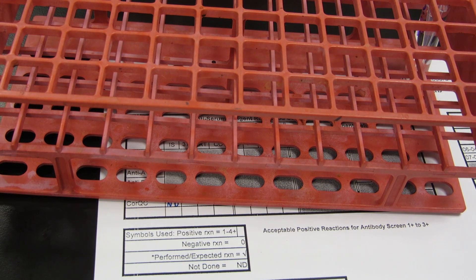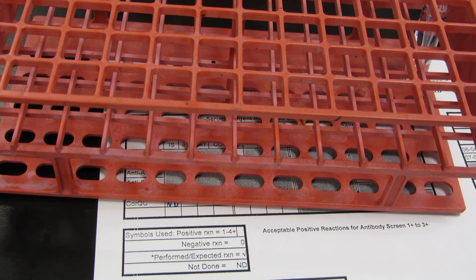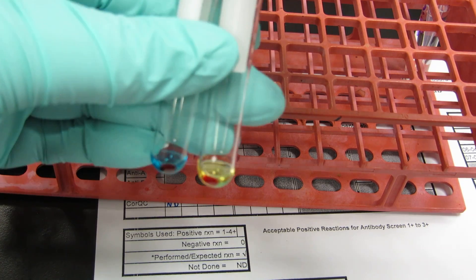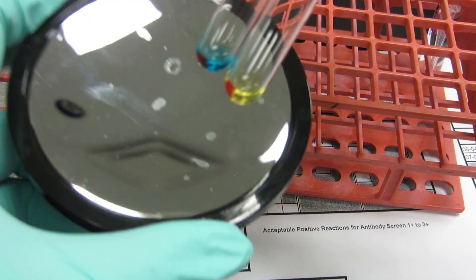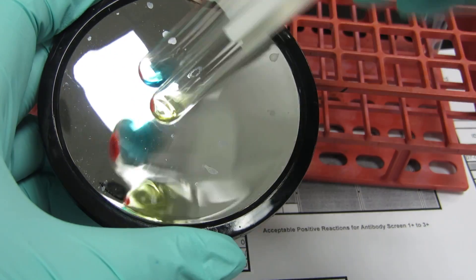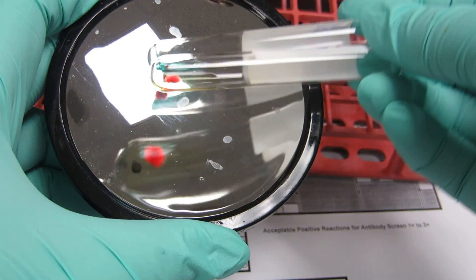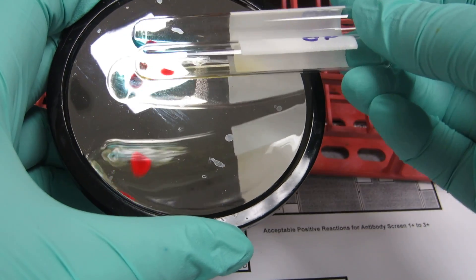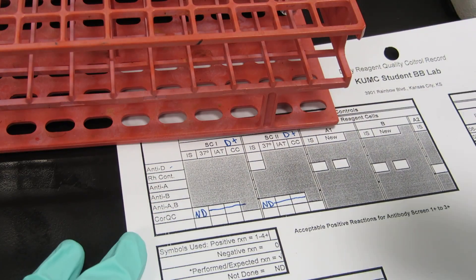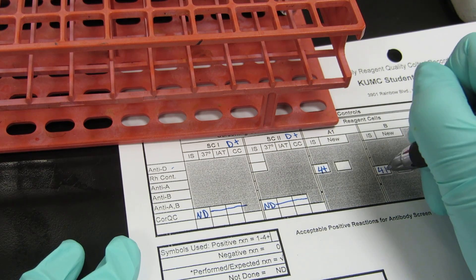My centrifuge is done. I'm going to read these in logical pairs as they come out, so I'll grab my anti-A and anti-B first. I have some nice buttons — I'm going to rotate those, and hopefully I have strong reactions on both. The B is off, and now the A is off — both are floating as a four plus. So you read two and you record two. My anti-A was a four plus, my anti-B was a four plus.